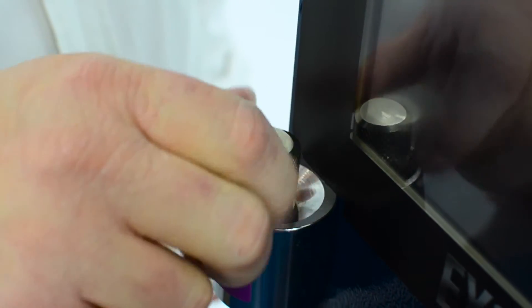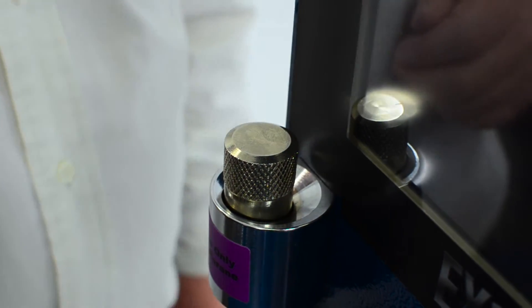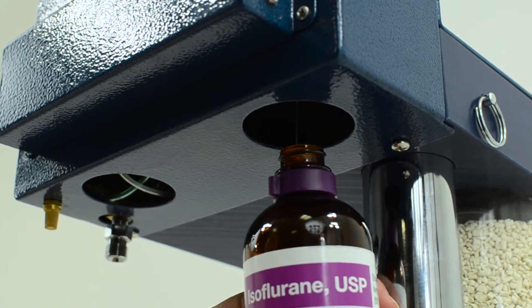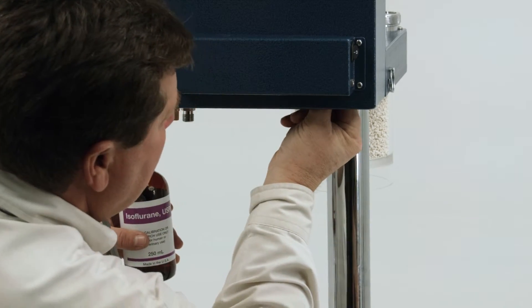While draining the isoflurane vaporizer, opening the filler port and allowing it to vent to room air will allow it to drain faster. When fully drained you'll just reconnect the plug.